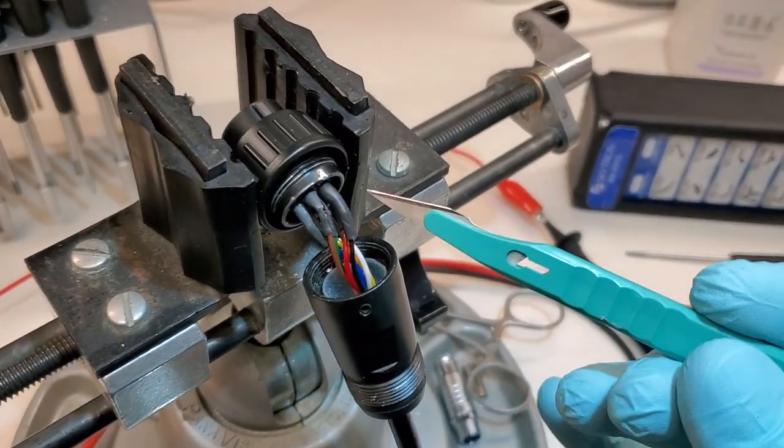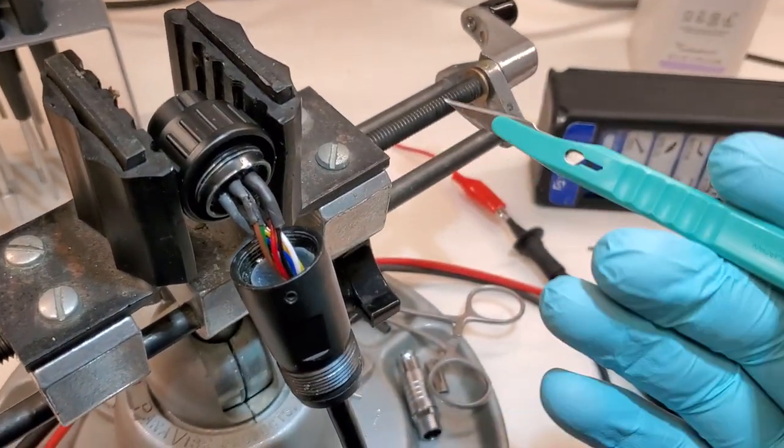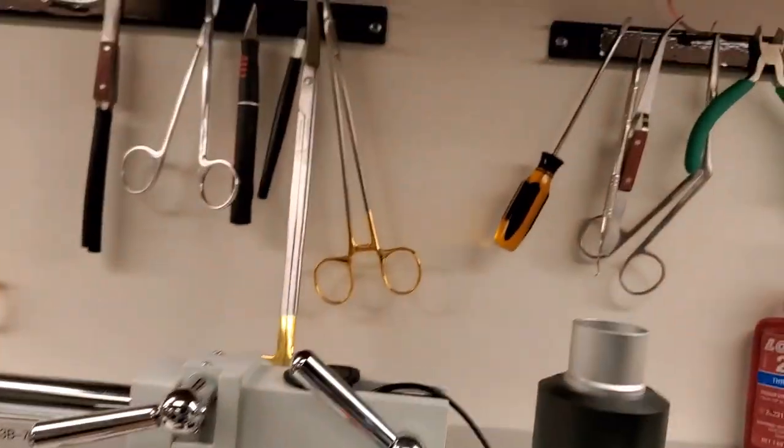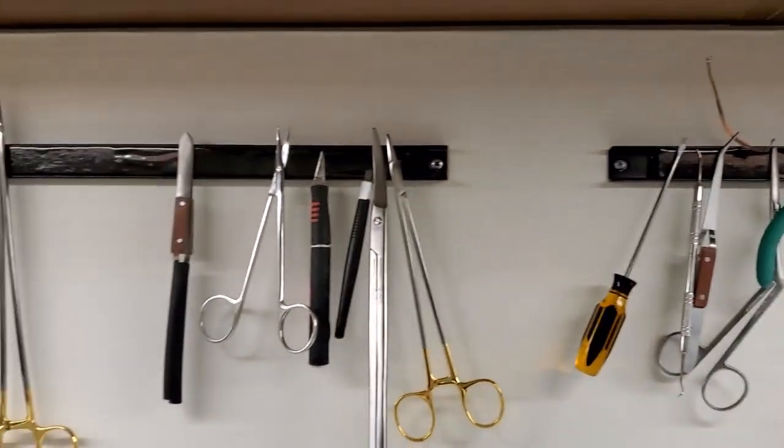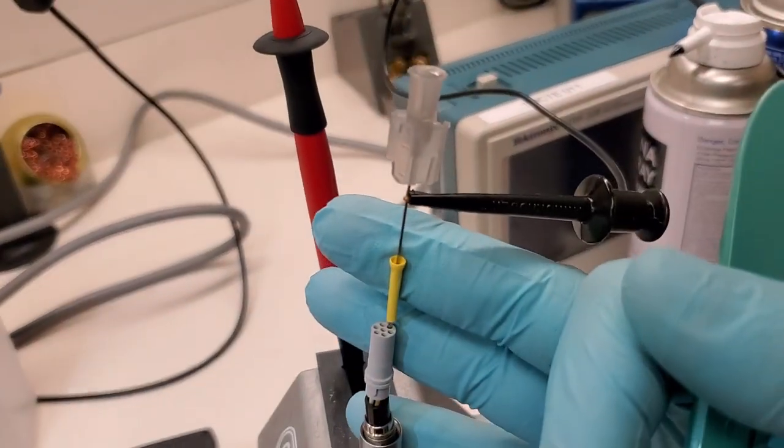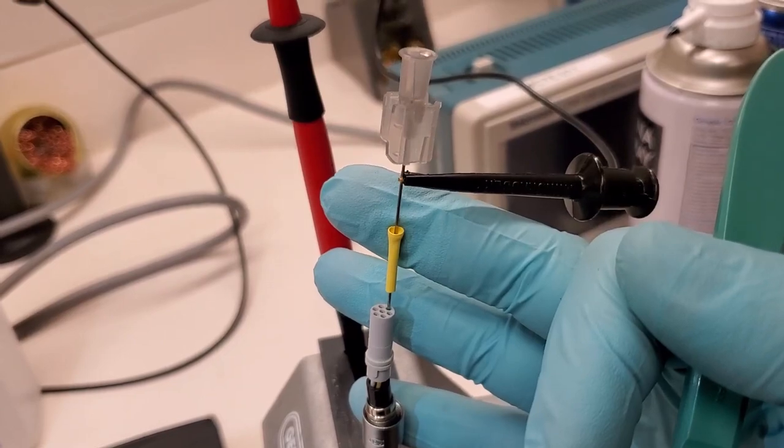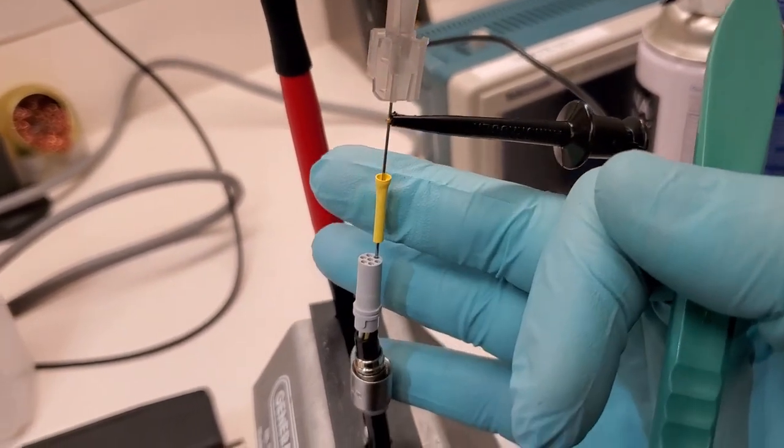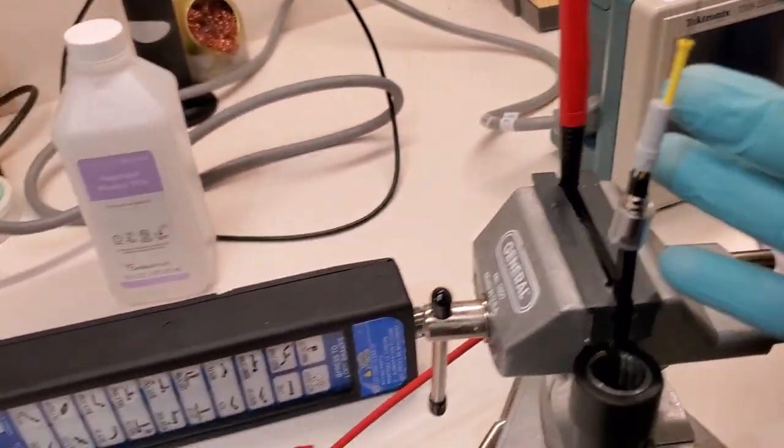So this is actually kind of a simple fix. I always keep sharps by my workstation. You can see right here I've got all the different types of sharps. And I've already done a video on using needles to help you with your troubleshooting. Here's a perfect example of that. You can see I've got the needle in one of the holes.